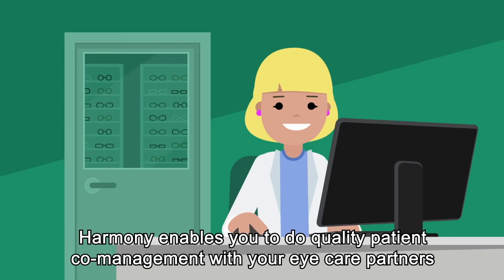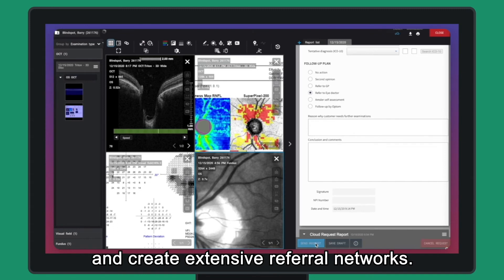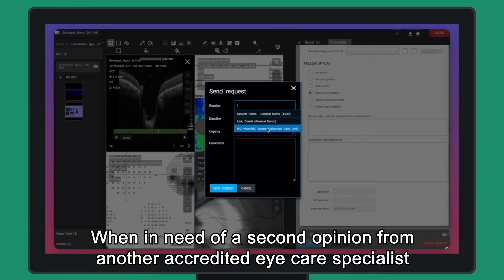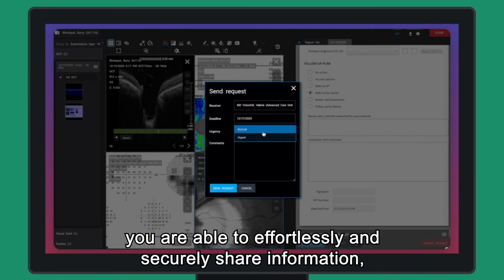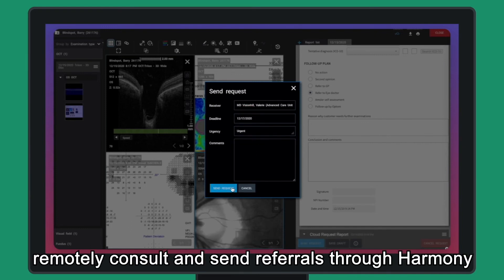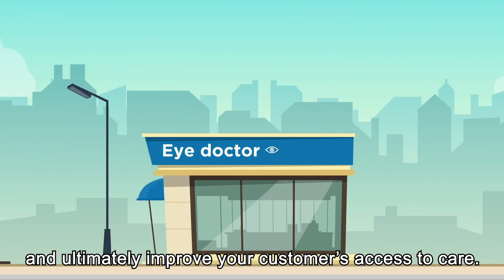Harmony enables you to do quality patient co-management with your eye care partners and create extensive referral networks. When in need of a second opinion from another accredited eye care specialist, you are able to effortlessly and securely share information, remotely consult, and send referrals through Harmony, and ultimately improve your customer's access to care.